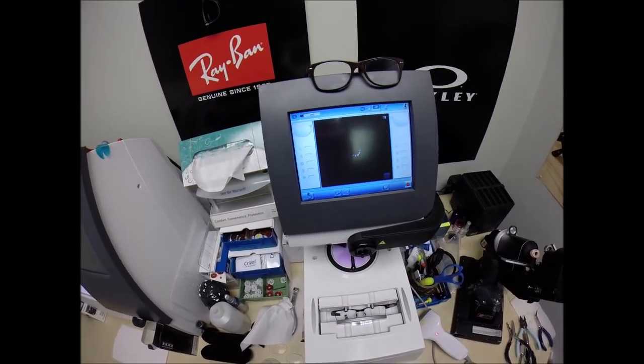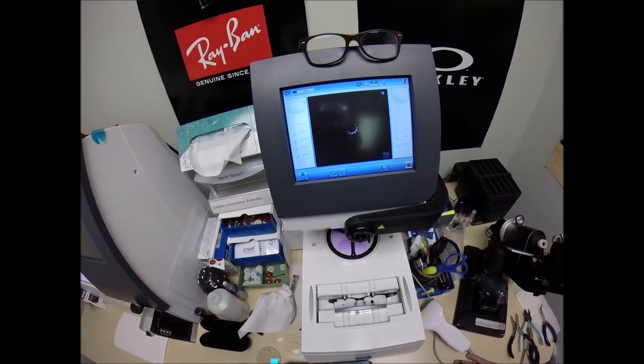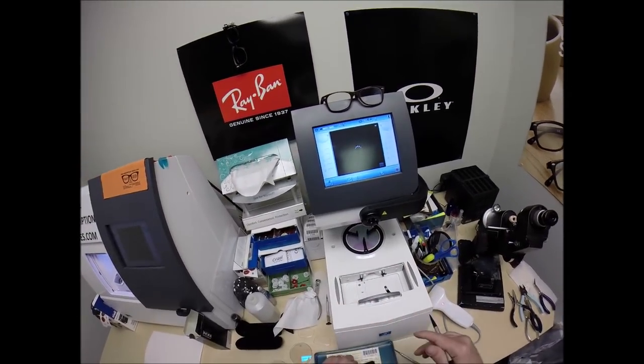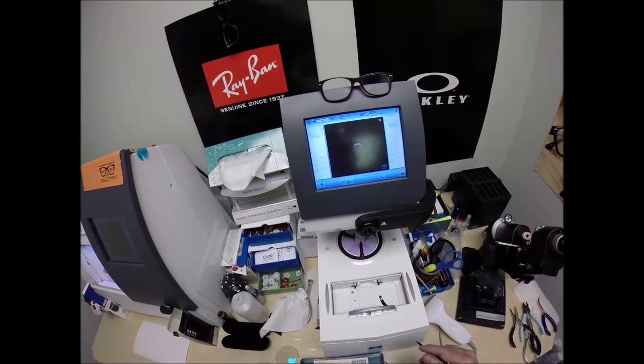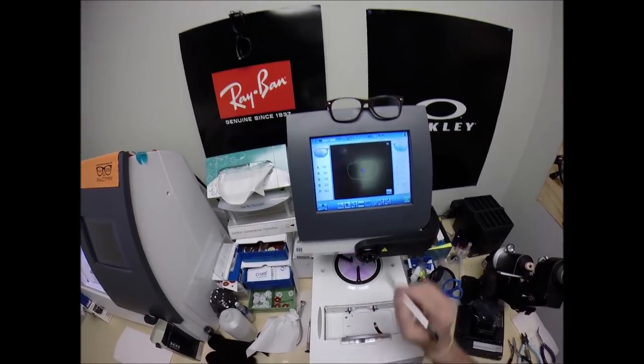Adam, you know you need prescription in here. So in just a moment, as soon as it quits buffering, it will tell me the shape of the lens I'll be cutting tonight. Come on, show me something, pop up on the screen. And that is it.